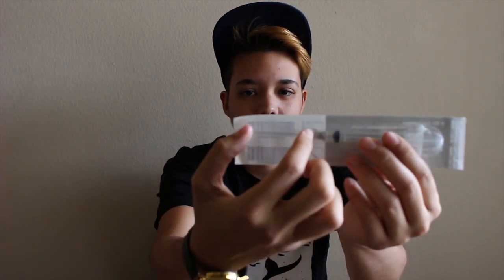Some of the things you're going to need: have your vial ready with the top off. This is kind of what the cap looks like — it'll just pop off when you get the vial. You're also going to want to have a needle. My endocrinologist usually orders me a 3 milliliter syringe. The needle is kind of long, but that's what helps with getting the testosterone out of the vial. You'll also want at least one band-aid ready so after you do the injection you can cover that area in case it's bleeding. You also want some form of rubbing alcohol or something that can clean the area before you do the injection, and something that will clean the top of the vial. I usually use hydrogen peroxide on a cotton ball and just rub the area.